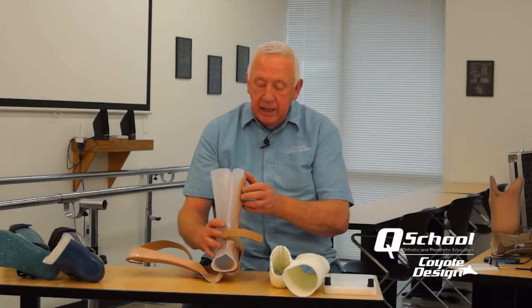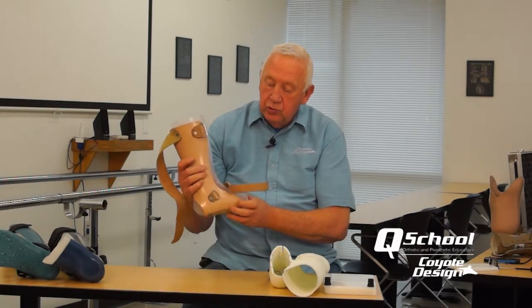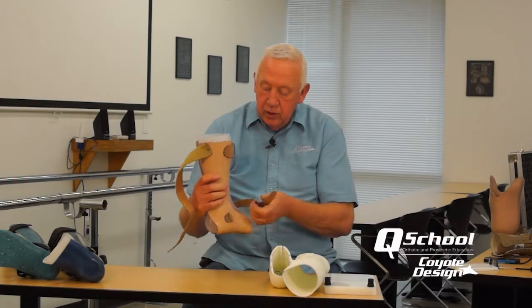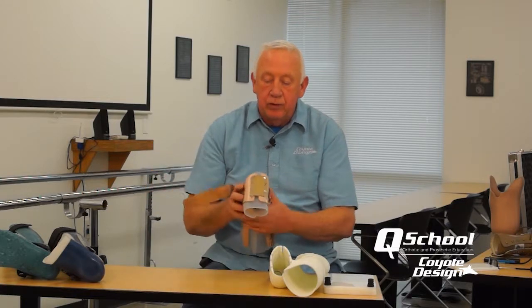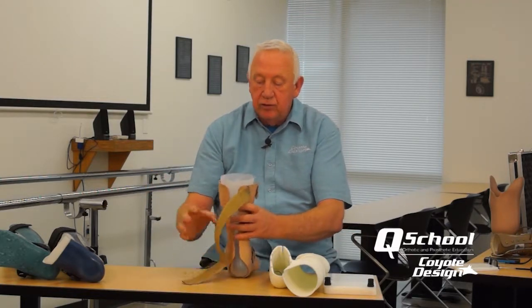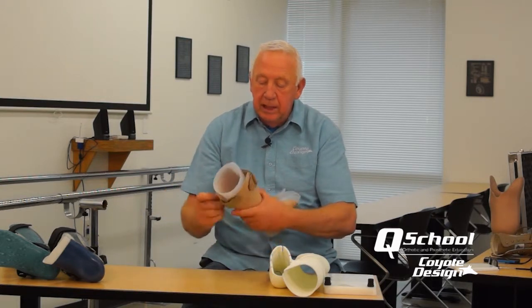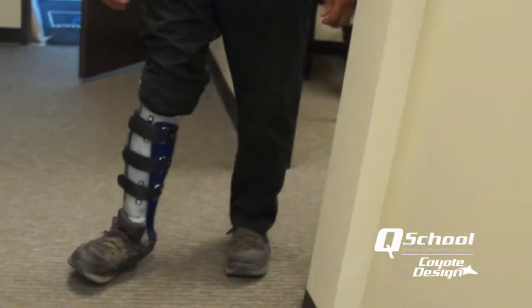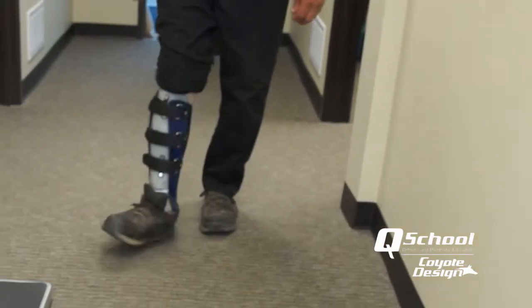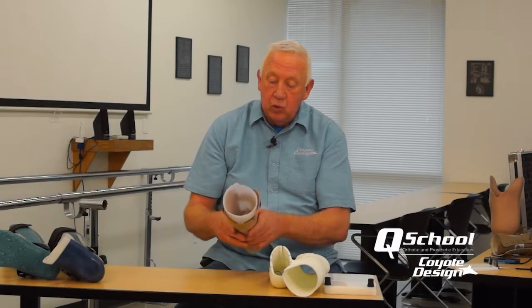To get it around the front of the ankle and make it a truly solid device, we hinge it on the plantar surface of the AFO. This makes it very easy for the patient to don, and when completed it doesn't take up very much room in the shoe. It's also easy to don and doff, and easy to modify if any fit adjustments need to be made.